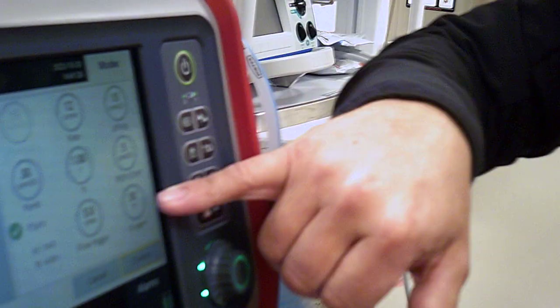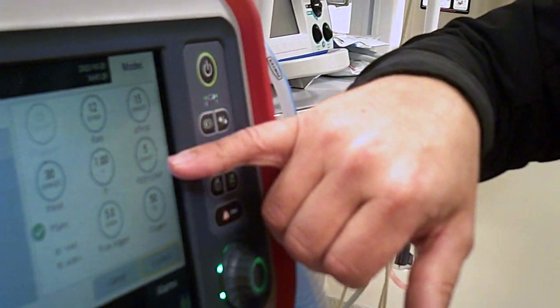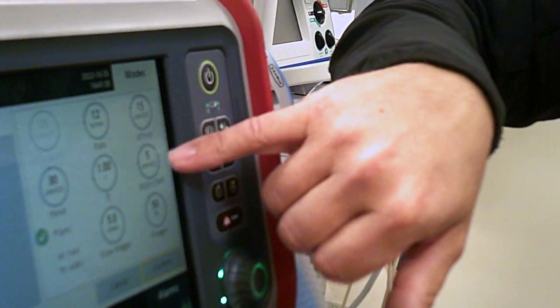So again, now this is the pressure side of the SIMV. Here again we have no tidal volume, and we're going to be at 20. We always have to add the PEEP.